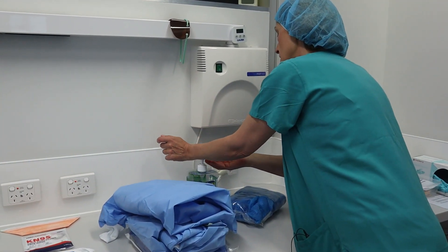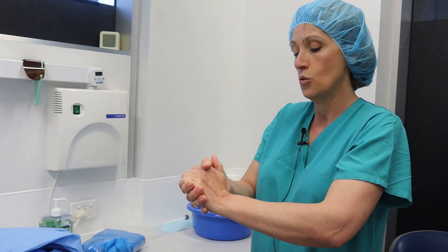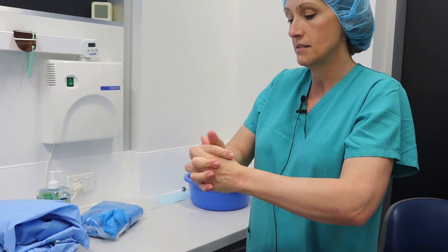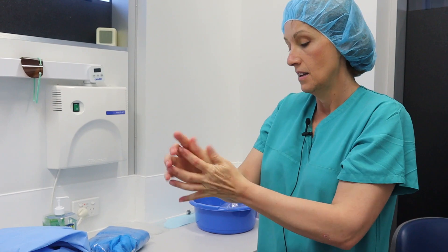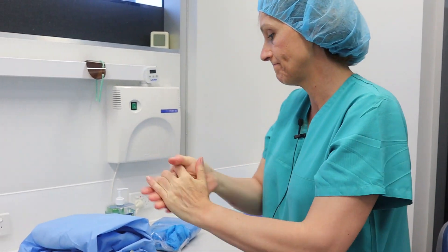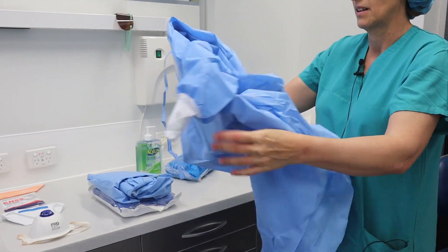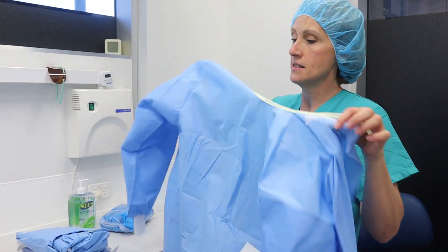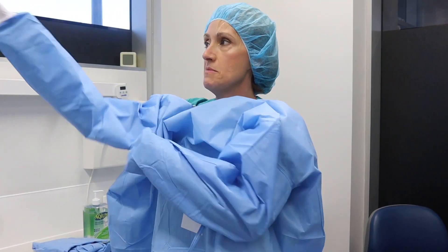Again, before the hand washing technique — notice that I don't use the palm of my hand; I use the elbow or forearm to depress the trigger, and again the same thing. Next I'll cover my body and I use a gown for that. I'll make sure I cover my arms and forearm — that's the most important part.